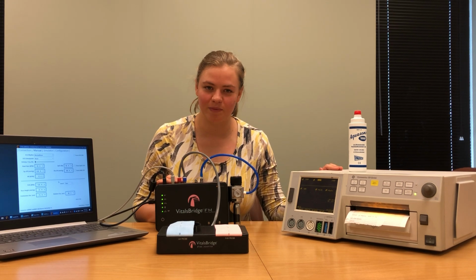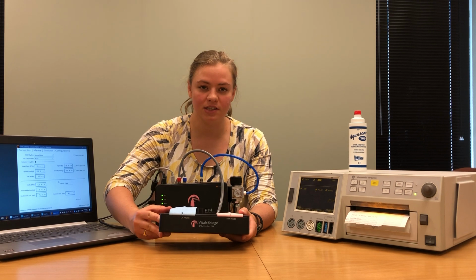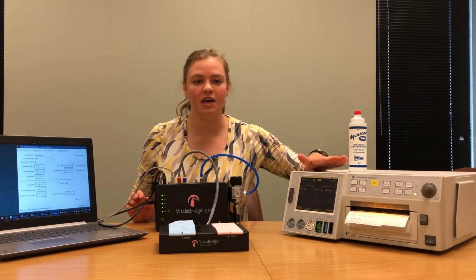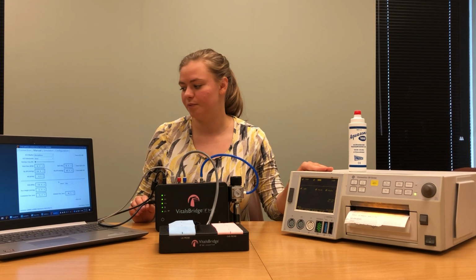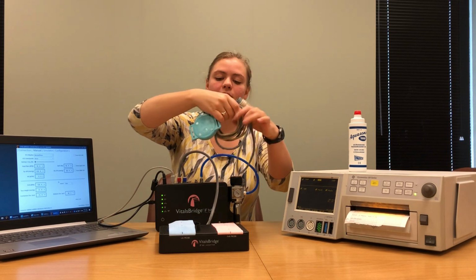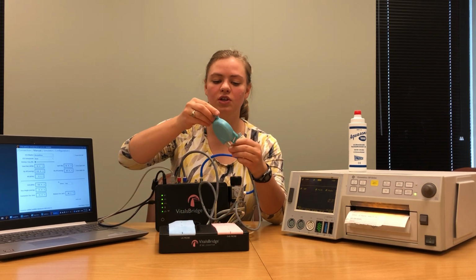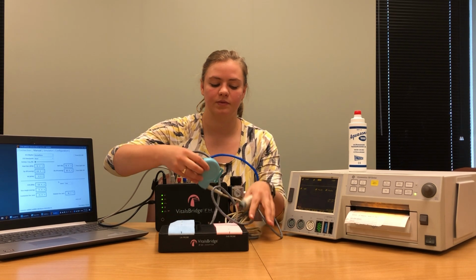to the patient monitor. The VitalsBridge FM adapter simulates contractions and fetal heart rate. To be able to measure both of these things, you're going to need the ultrasound probe and the TOCO probe that were included with your patient monitor. The ultrasound probe looks something like this. You've got one end that plugs into the patient monitor, and on the other, you've got a circular probe that has a smooth plastic surface on one side.